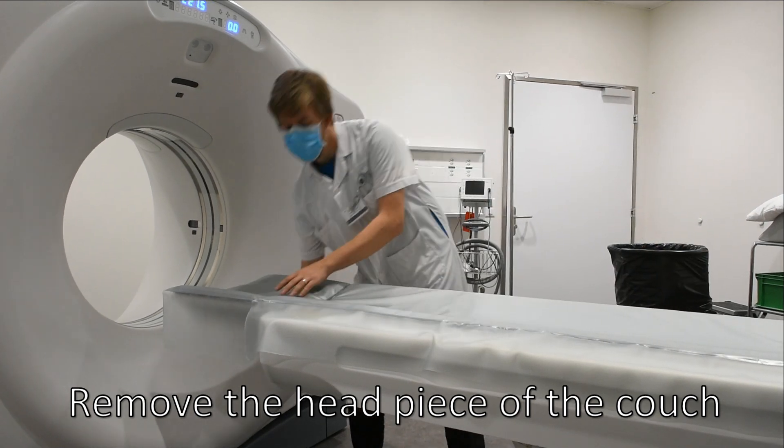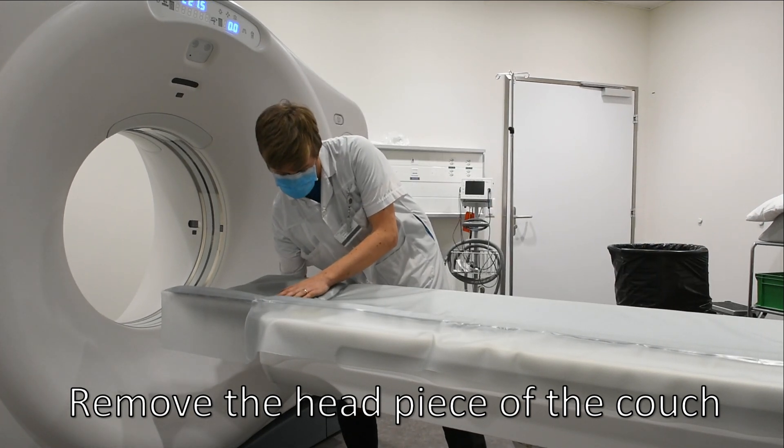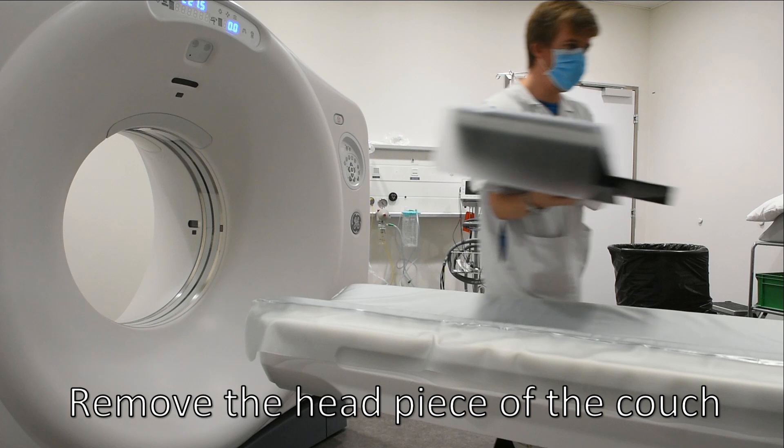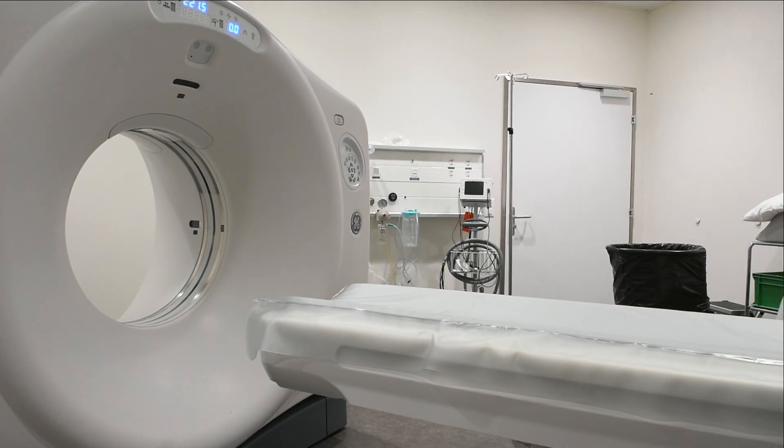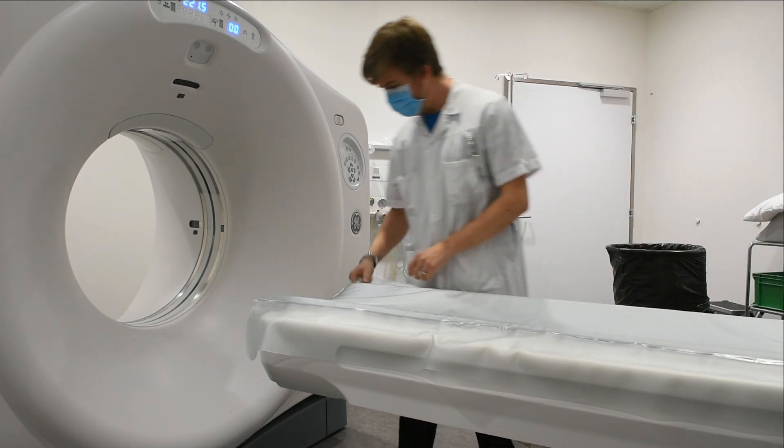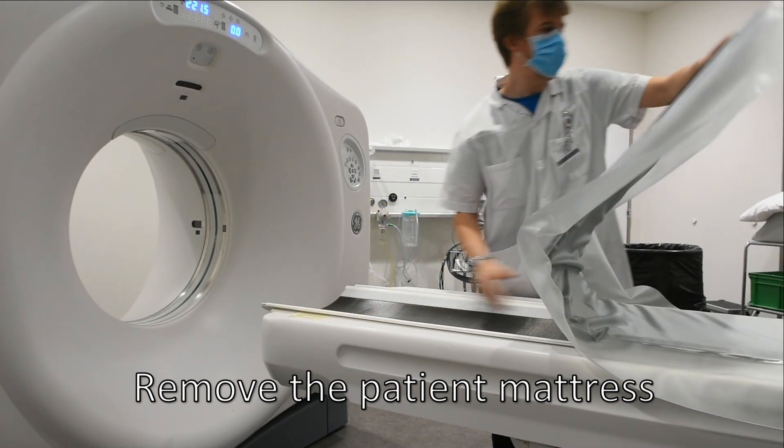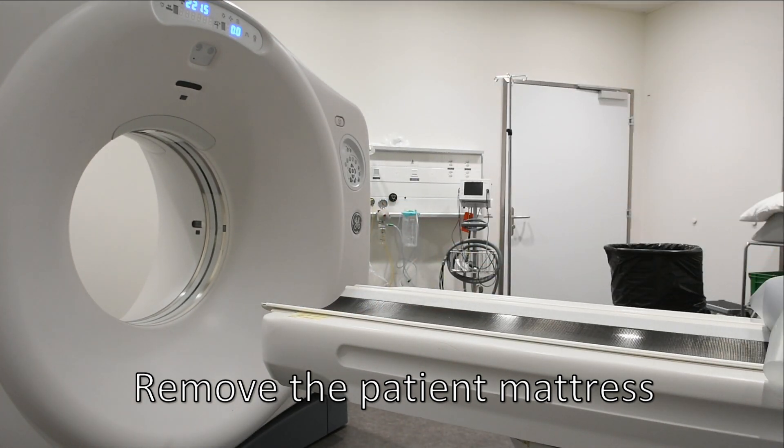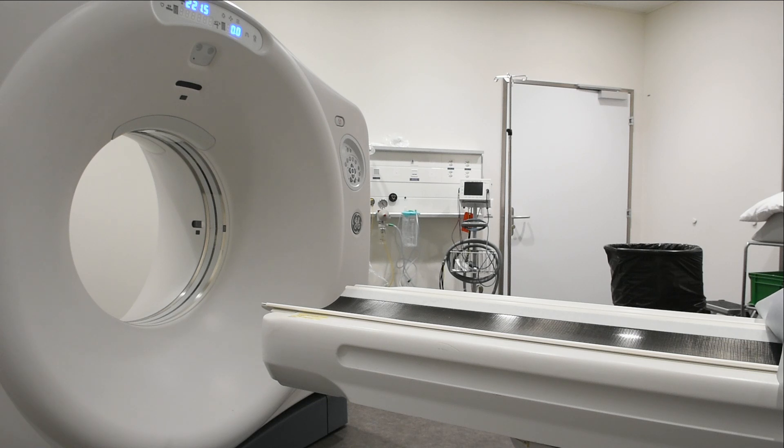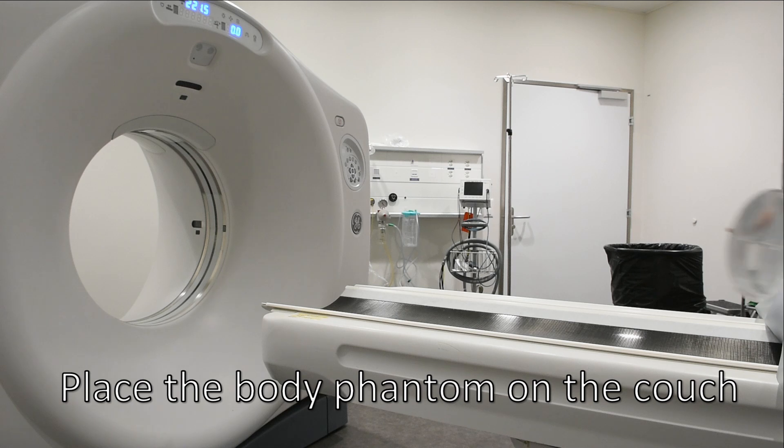Remove the headpiece of the couch. Remove the patient mattress. Place the body phantom on the couch.